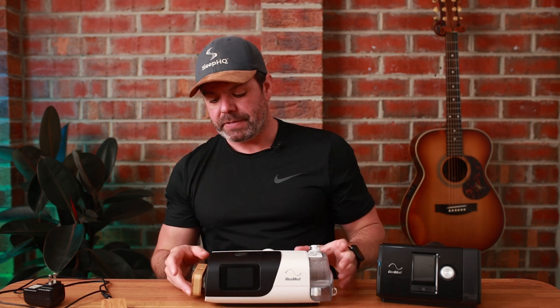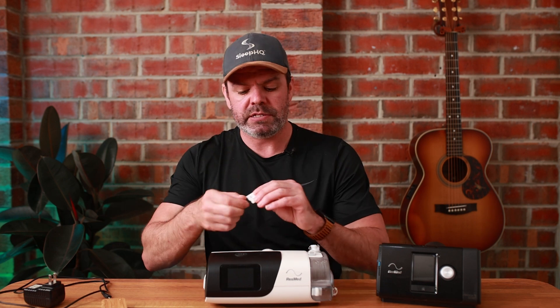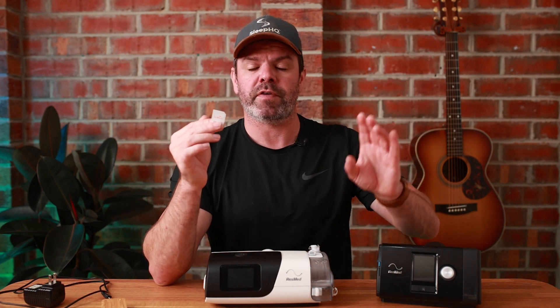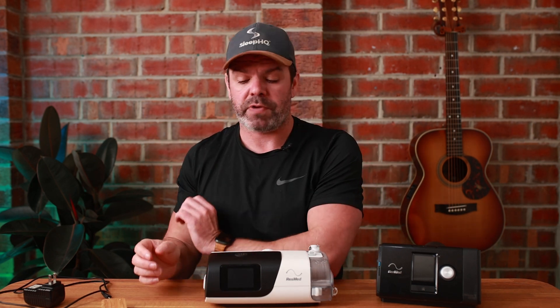How does it work? There are a few components that come with the kit. First is a Wi-Fi SD card — a little bit different to your standard SD card because it has Wi-Fi functionality. On this, we store your home Wi-Fi credentials: your network name and your password. Just like you connect up a phone, you put those details on here, put it back in your device. The whole setup takes around a minute.